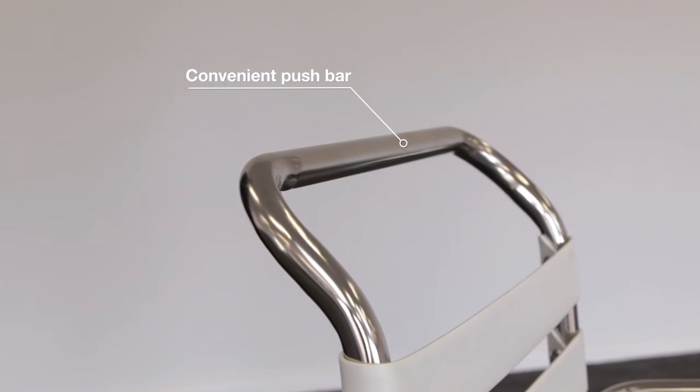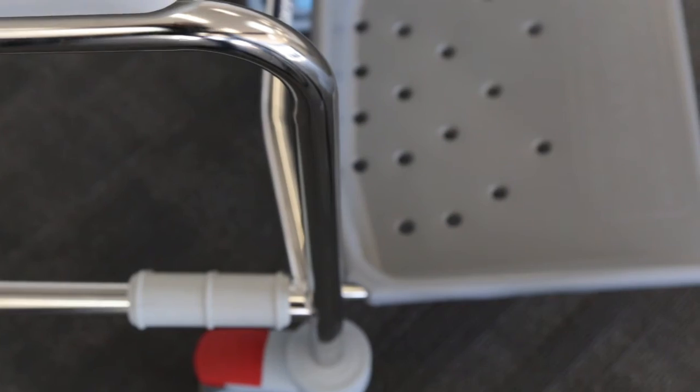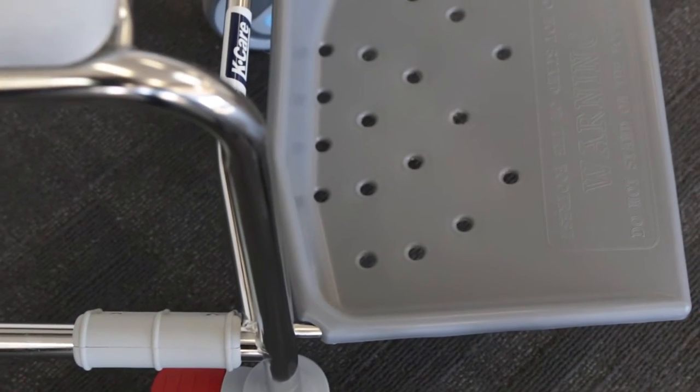The sliding footplate model comes in multiple sizes, making it a versatile commode for a wide range of users.